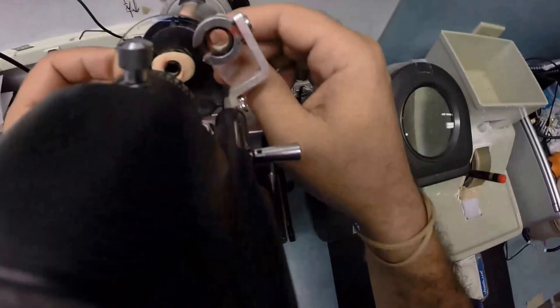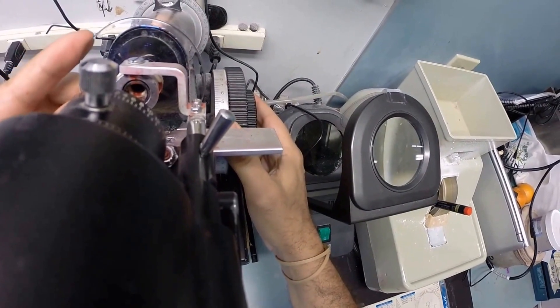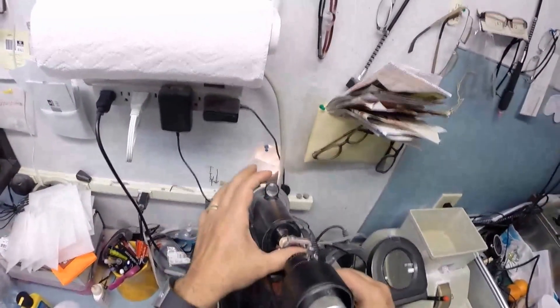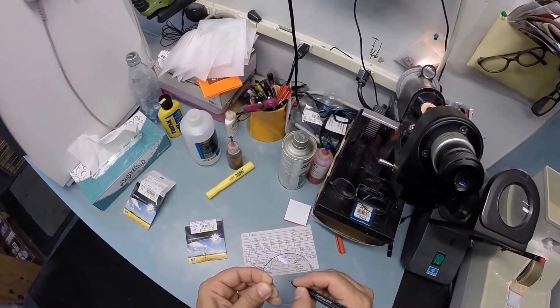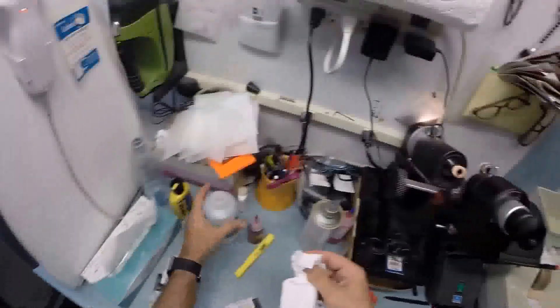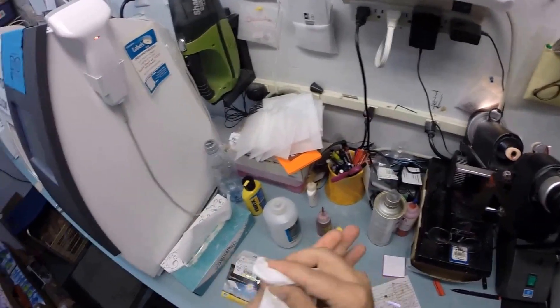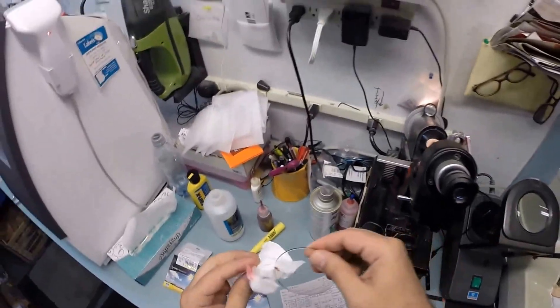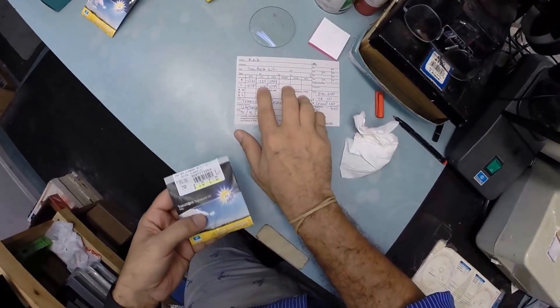Put your lens in. I'm going to rotate it until the spherical power comes in clearly. Find the optical center of your lens. Check your astigmatism correction. Now I'm going to put three dots on your lenses - I'm going to darken them. One, two, and three. This is your right eye. That's just ink from the lensometer - if that were blood, I'd be screaming and crying right now. So let's do the same thing now for your left lens: minus 50, minus 1 at 55.